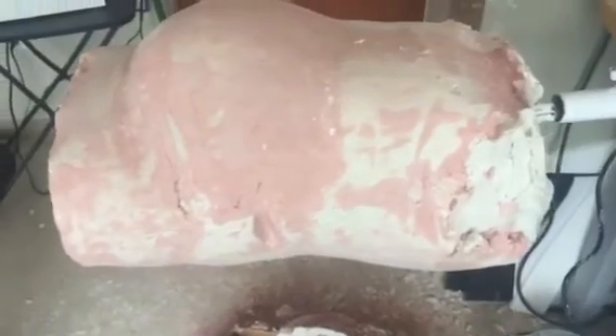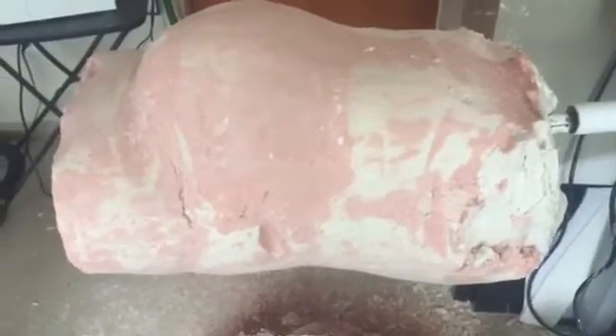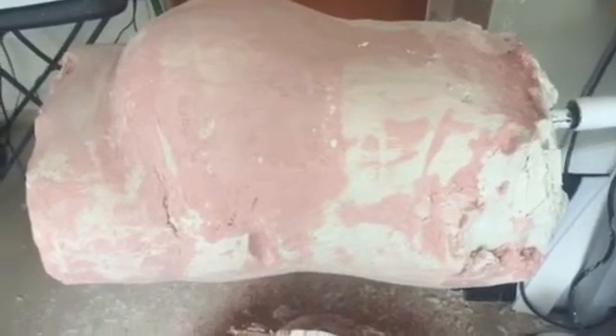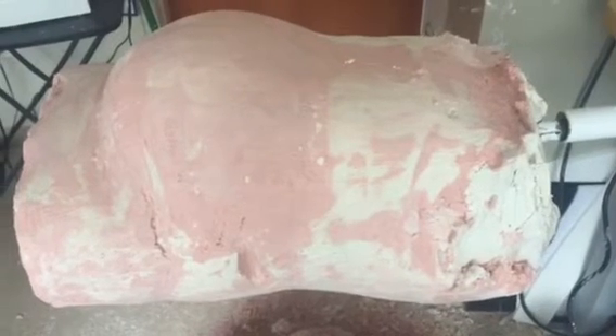Some things here, like this, would be where the waist groove goes on the patient. Typically the way Rinella Orthotics and Prosthetics makes the braces is that the waist groove goes right above the top of the hip bone. That's one of the keys on knowing how to put these braces on.